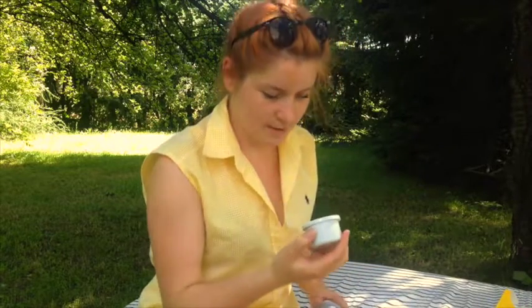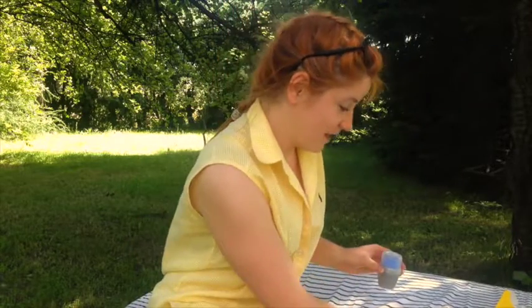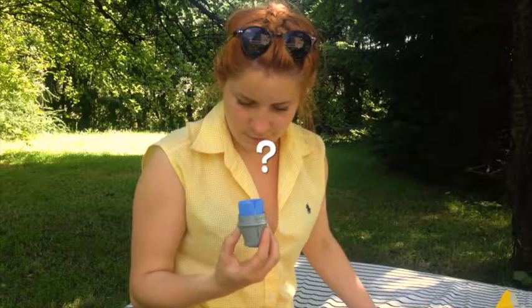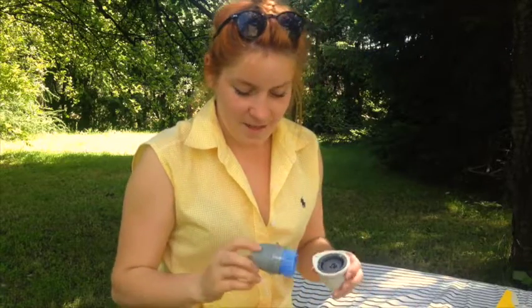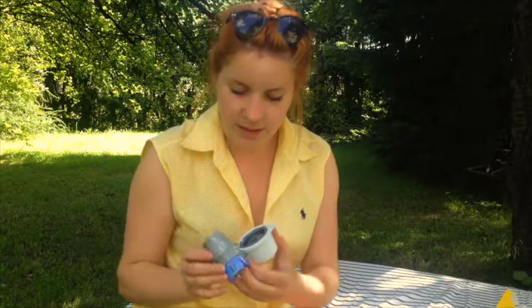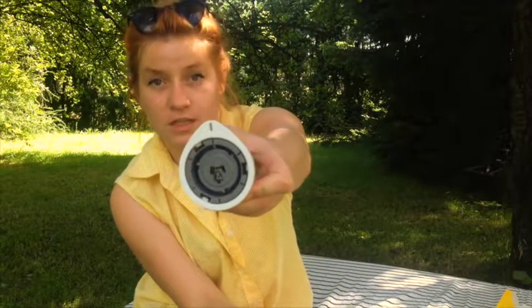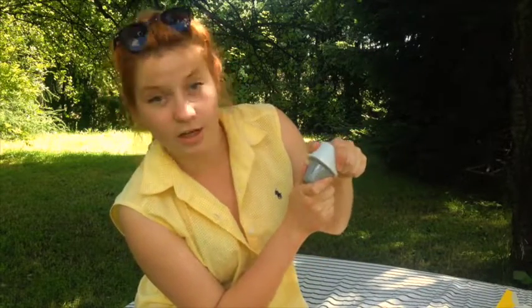Tutaj w środku jest sensor — on naprawdę tam jest, jestem tego pewna. Następnie to co musimy zrobić, to znaleźć taki paseczek brązowy, albo raczej szary, który dopasowujemy z paseczkiem znajdującym się na sensorze. Dopasowujemy je, a potem mocno przekręcamy — to jest serter — i robimy klik.